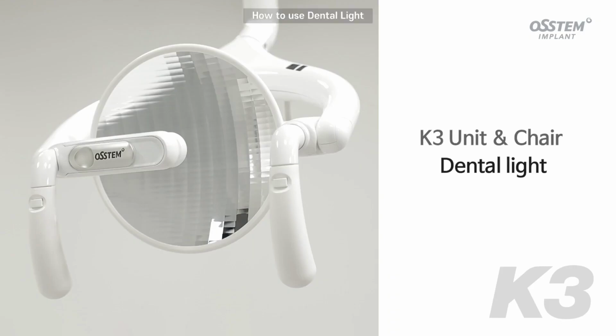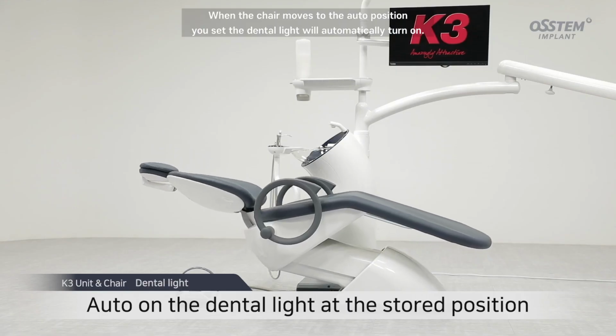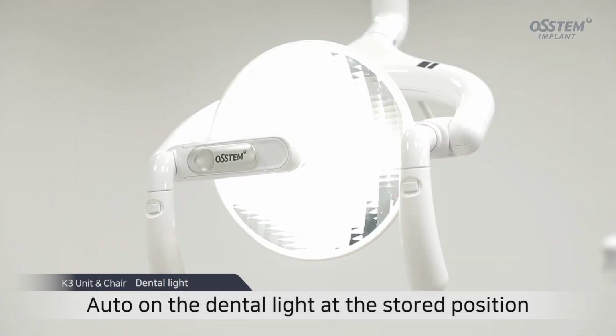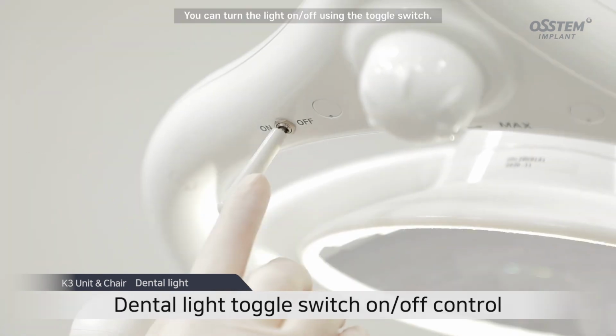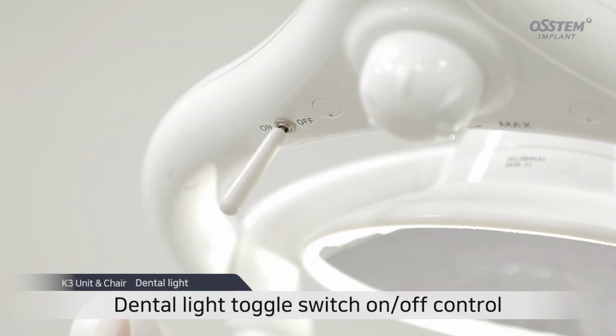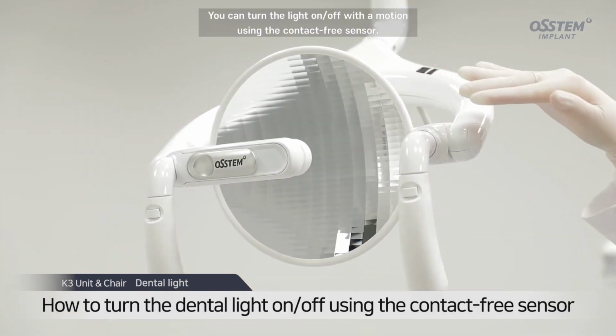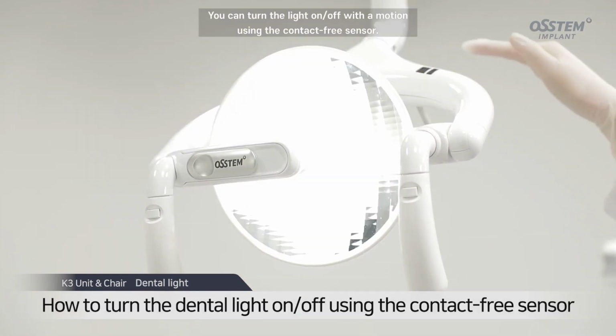How to use the dental light. When the chair moves to the set auto position, the dental light will automatically turn on. You can turn the light on and off using the toggle switch. You can turn the light on and off with a motion using the contact-free sensor.